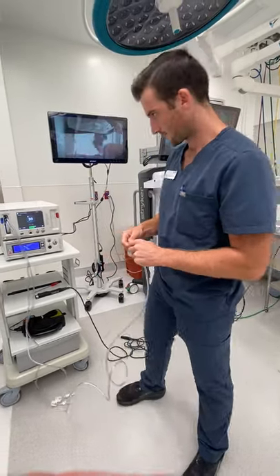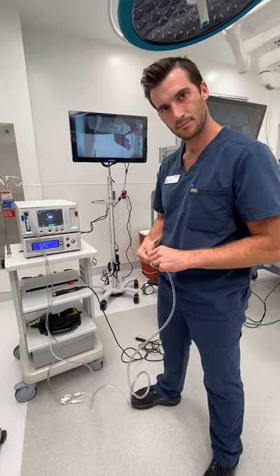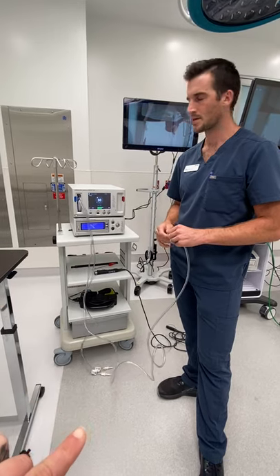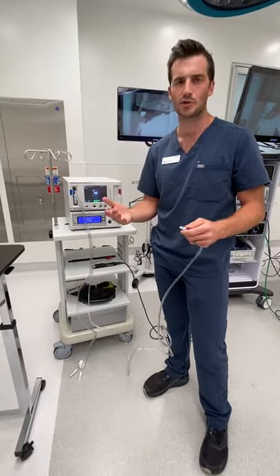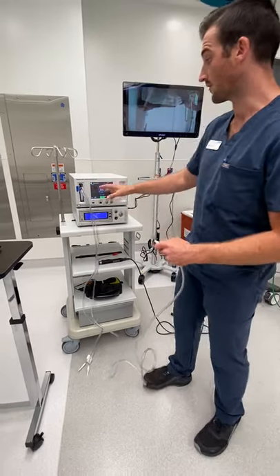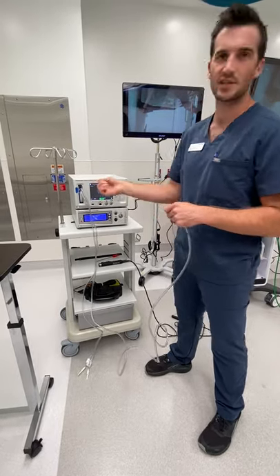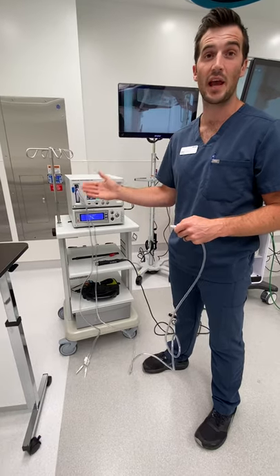Question: on previous arthroscopy pumps, if you don't release that little clamp, can it mess up the whole tubing system? Answer: Yes — what could happen is there could be some error in the lines. In terms of cassette failure, no — it won't be cassette failure. The surgery will still be aligned, it just may not be as optimal. So it might be something you want to pop out the cassette and redo it. But be aware that if you've used it for a while, it's going to expire if you try to pop it again. If you initially pop it out, put it back in, and prime again — you can always do that. But if you take it out, wait 10 minutes, and put it back in, it's not going to work, because these do expire. But if it does happen, you can always reprime it.